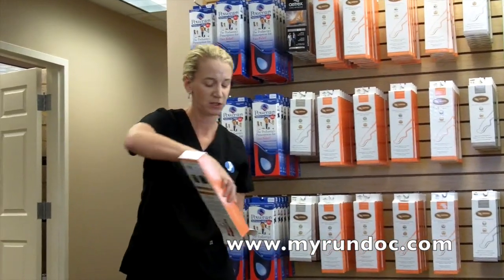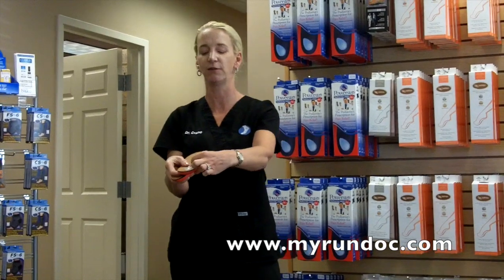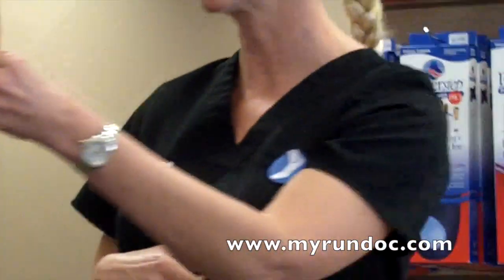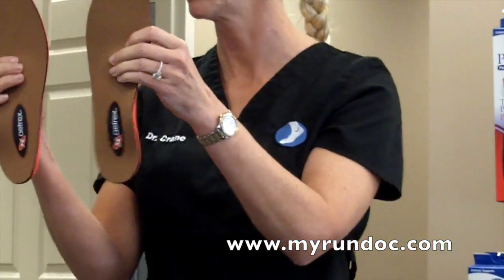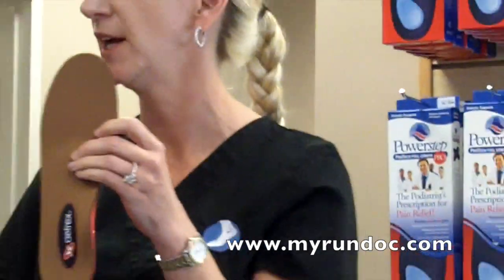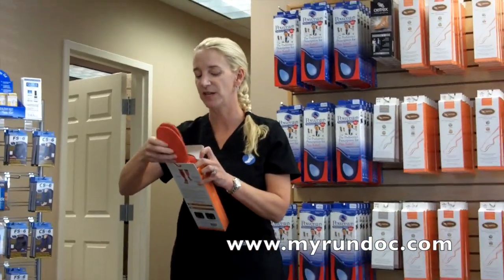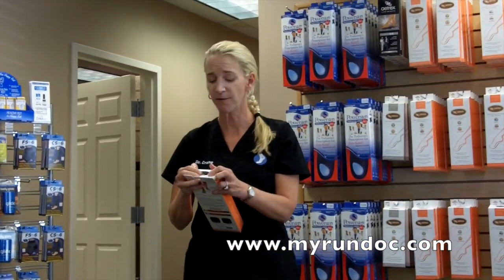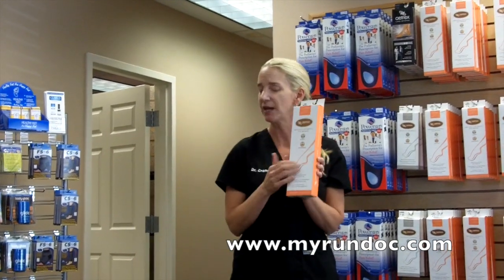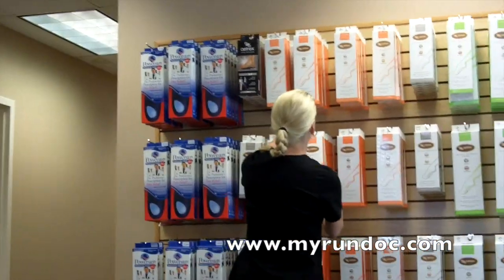Your 405 is going to look very similar because it's still got the cupped heel, so your rear foot is only going to give you that little two degrees of correction there. But it's got a metatarsal little pad in there that will drop the toes down, kind of like you saw on the dress one. These are quite firm in the metatarsal pad area, so some people it will irritate them — hence why sometimes we have to go back to the 400. I do tell patients to give them four or five days of walking around, kind of get used to it. If they wear them for a full day, that first day they'll feel like they have a bruised feeling because it is a firm piece. But the reason they make it firm is because it holds up — we want this to last a year.